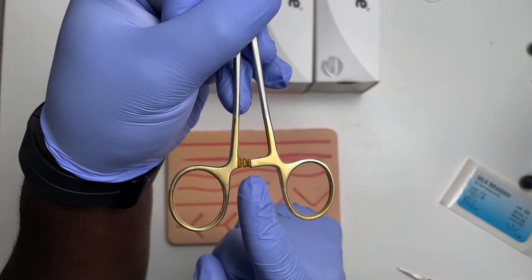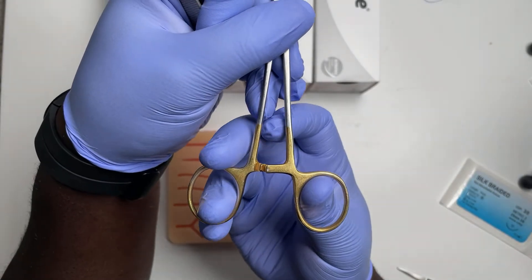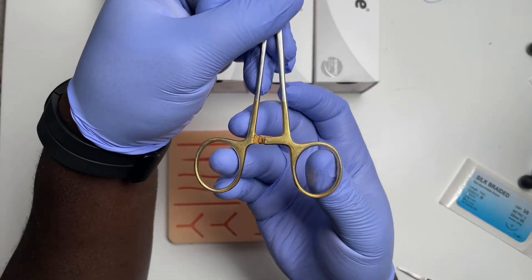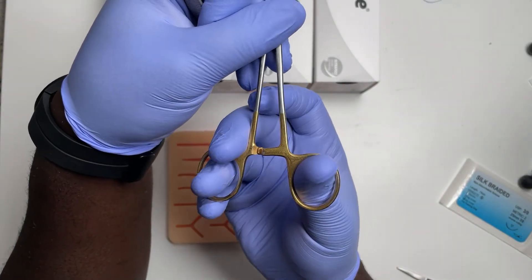If you look at the needle holders, they have this ratchet right here. You have to put down pressure on one, up pressure on the other to open it. So it doesn't require force, just pressure.